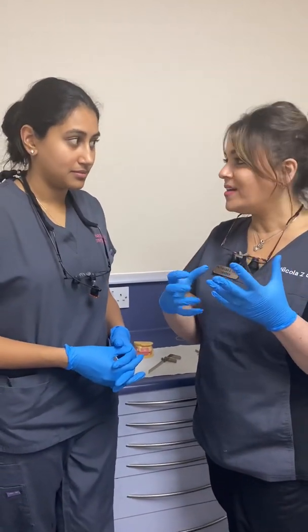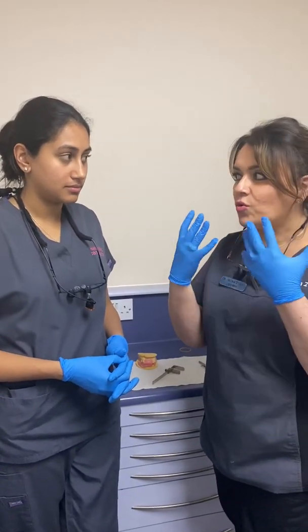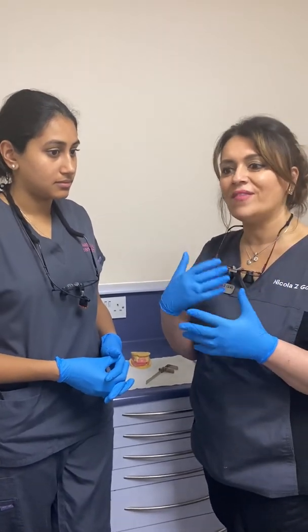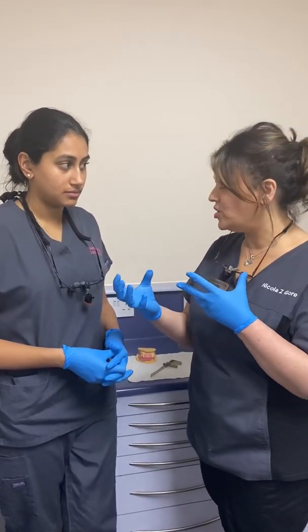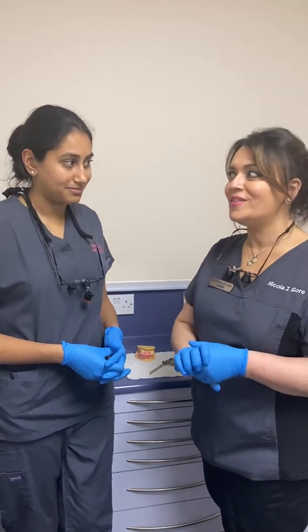So you want to make sure you stick to the correct dimensions. After you've analyzed the old dentures and analyzed the patient's intraoral ridges — to see how much ridge you have, decide what type of denture you're going to make, understand the reasons the patient wants to change the denture, and note what they like about the current denture — then you take your primary impressions.